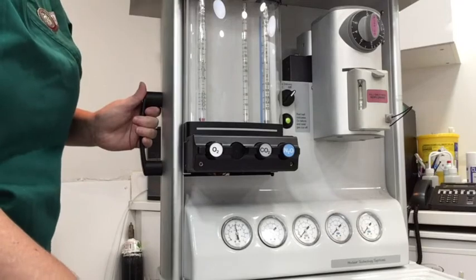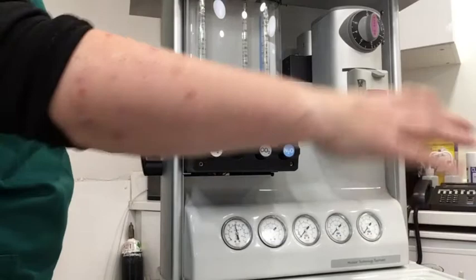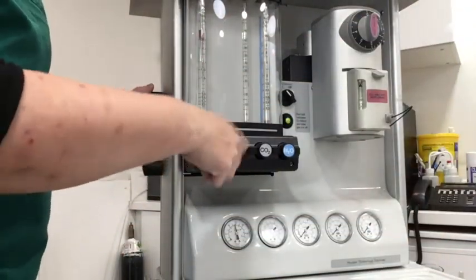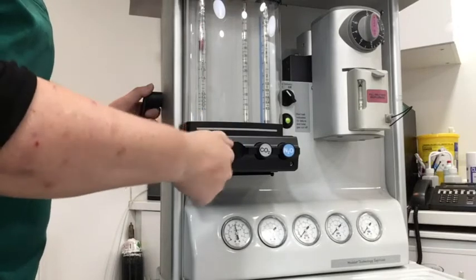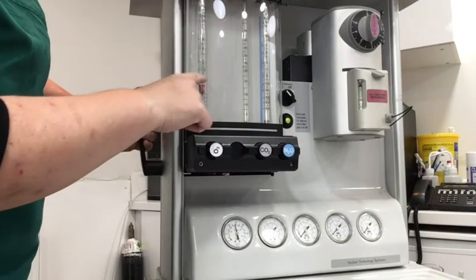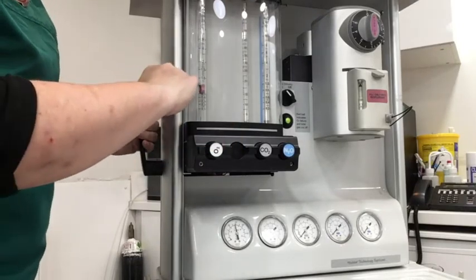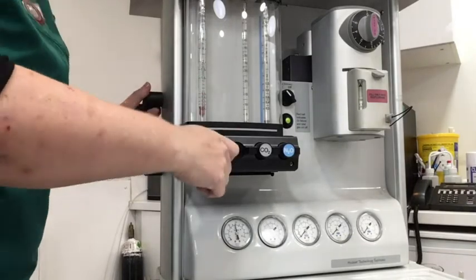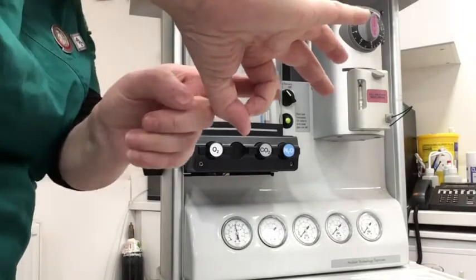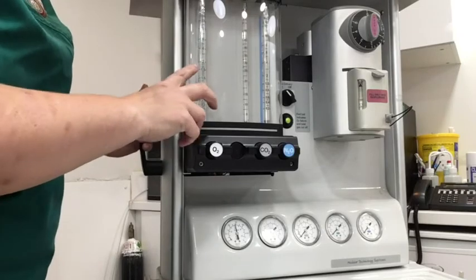You will find that these always work better left to right, because your oxygen is always coming in on this side and then tends to be coming out the other side or at the front. My bobbin is spinning because I can see the dot. Remember, for a bobbin, set it to the top of the bobbin. And if it's a ball — which is very old-fashioned — it's to the middle of the ball. The dot is purely so you can see if it's spinning, because sometimes it's not always very clear.